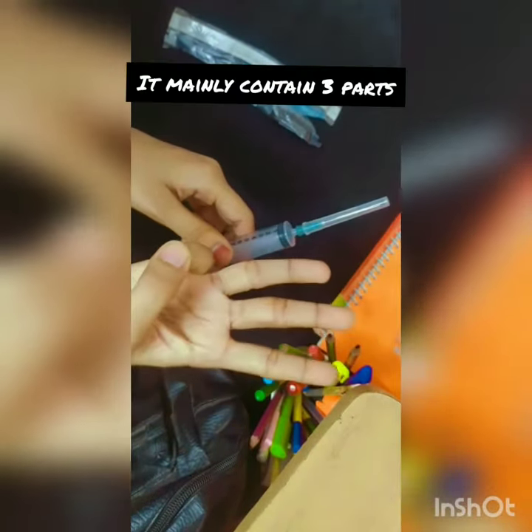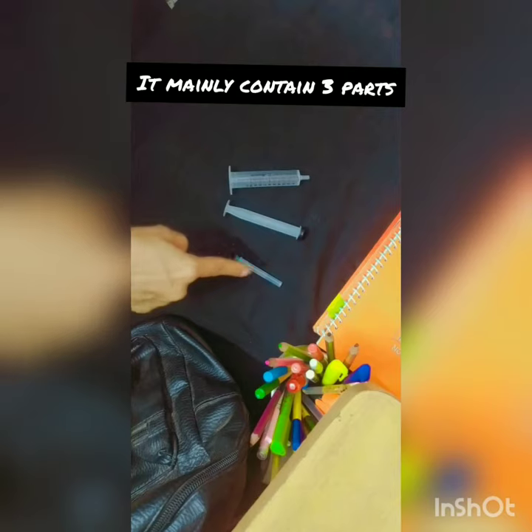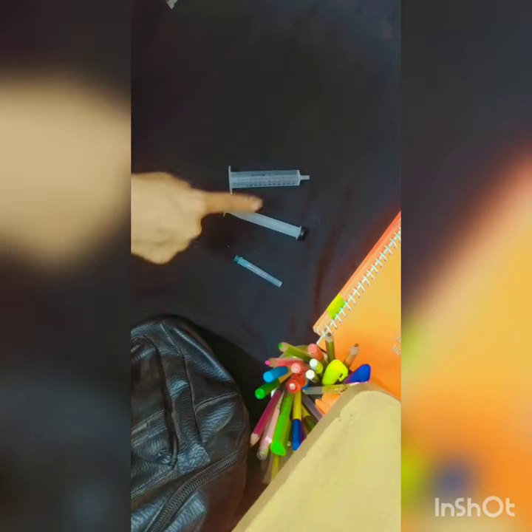A syringe is a medical device that is used to inject fluid into or withdraw fluid from the body. A syringe basically contains three parts: needle, plunger, and barrel.